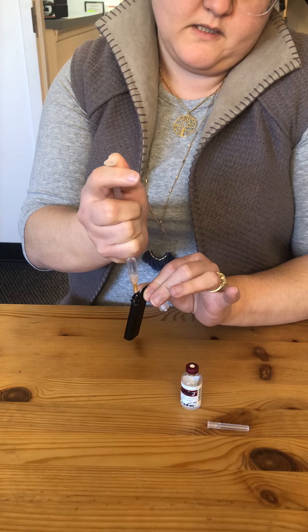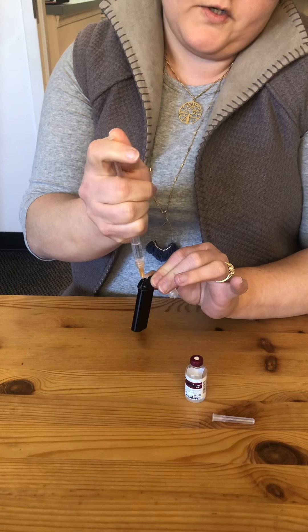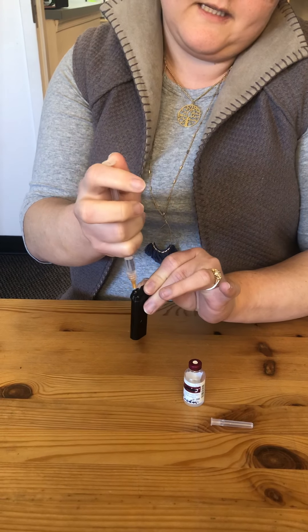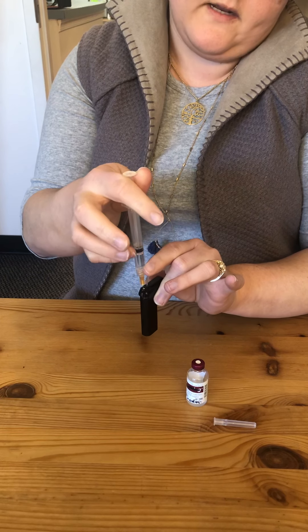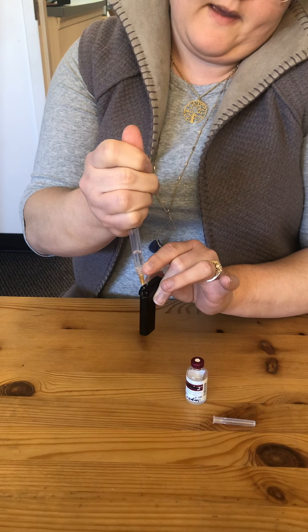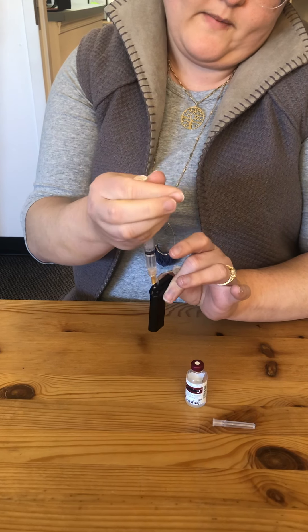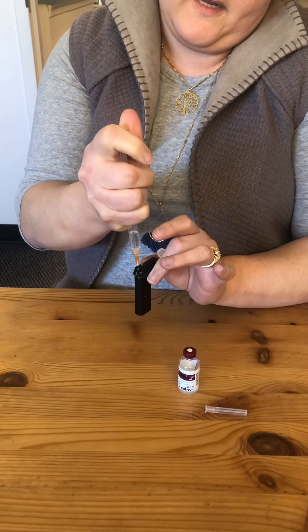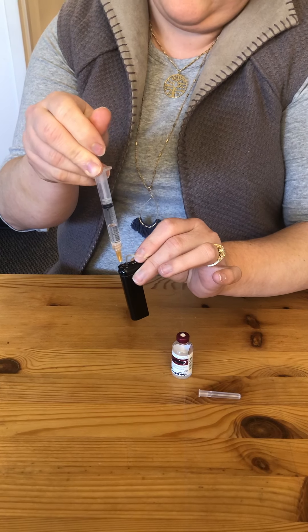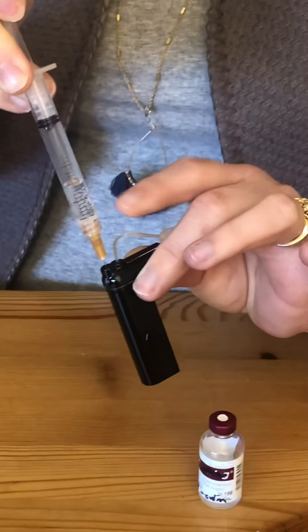As I'm pulling you can see these air bubbles pull out, and initially I get really big ones, then I let it go. Each time I do this it's pulling air out of the cartridge and letting insulin replace it. I'm going to repeat that — I pull up pretty far, that's why I don't put like 3 ml's, I just put one, so I've got plenty of room for that plunger to pull those little air bubbles out and let them go back. If I do that about four times I'll stop getting large bubbles and start just getting small champagne bubbles from osmotic pressure.